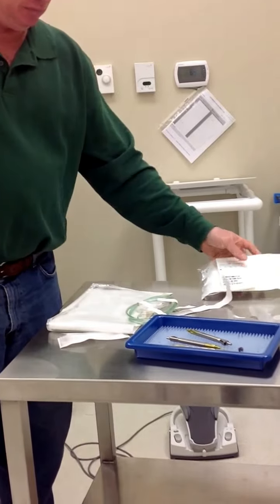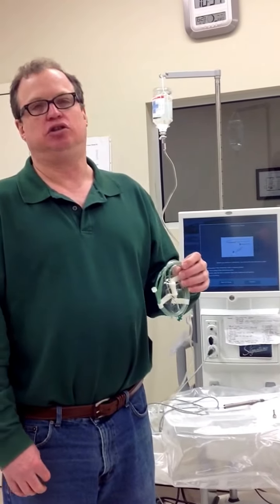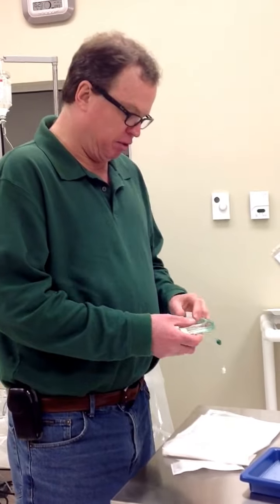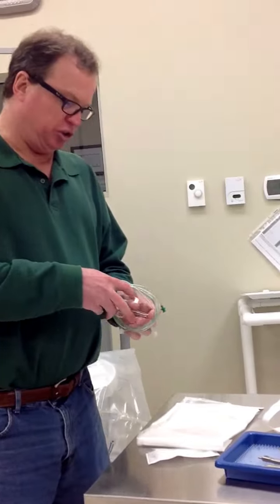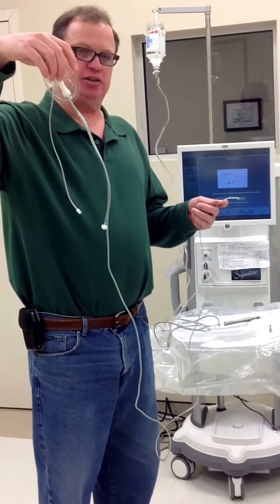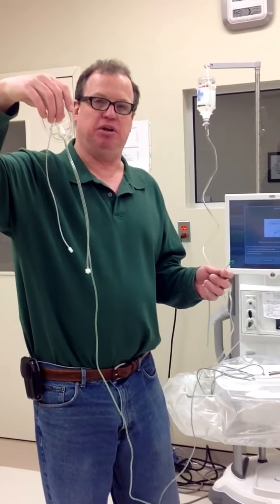Okay. Now, there's 3 tubes coming off the vitrector. One is very long, 2 is short. The very long one is also colored green. So when we undo our paper here, we'll see that the green one is quite long. The green one is the pneumatic drive for the vitrectomy cutter. So it's the compressed air source that makes the blade go up and down.